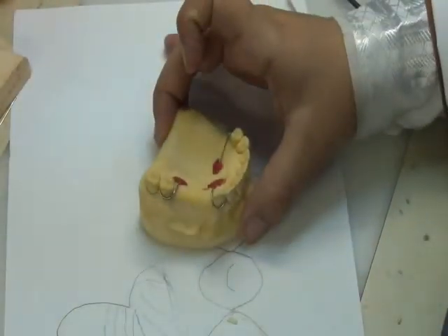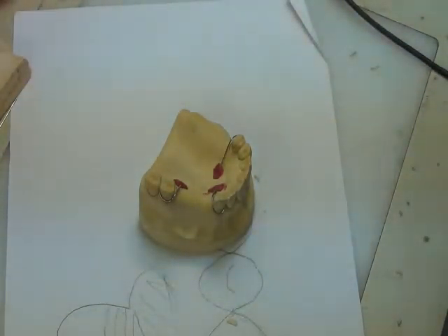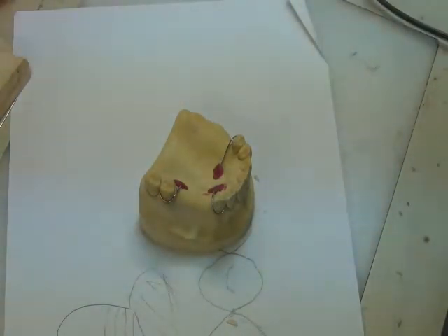So now we are going to begin our work on the T-casts you have. And we're just going to revise the final point about how a tooth contacts the other tooth with the presence of a wire in between. Okay? How does a tooth contact a tooth with the wire in between?